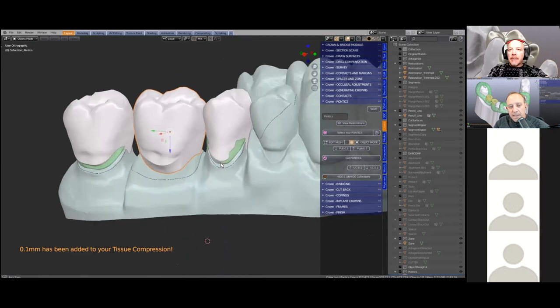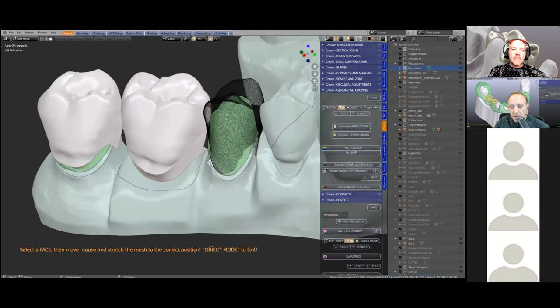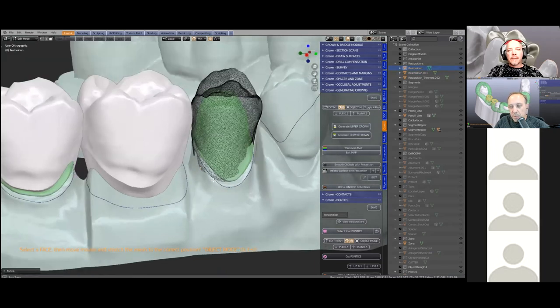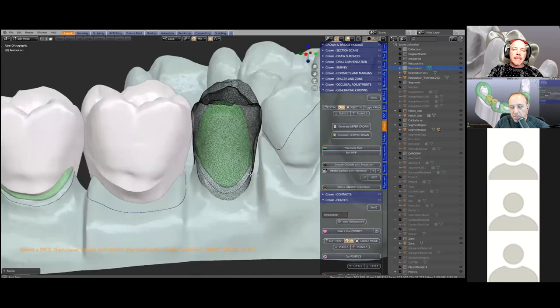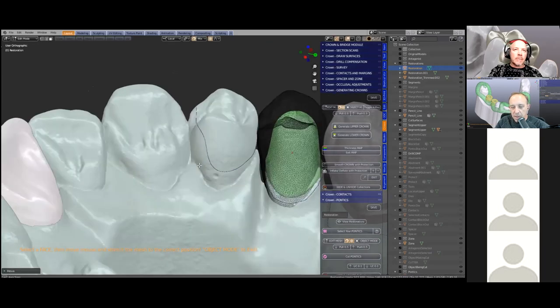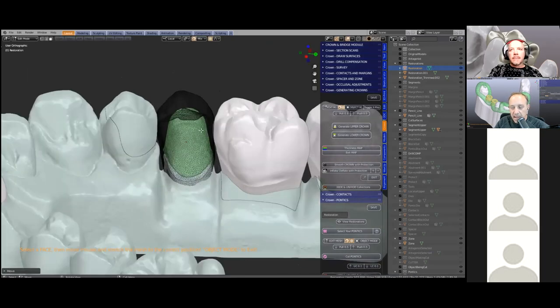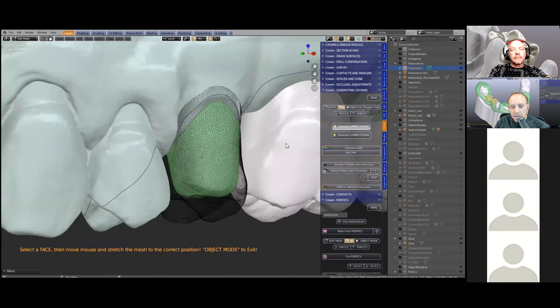The next part: Michael's going to the 'generating crowns' sub-menu — this is where the magic happens. First, you just pull the mesh of the tooth library tooth over the pencil line, trying to establish a good tooth emergence profile from the tooth prep line upwards. You're just bulking it out, pulling the mesh — it's very easy to do. You click into the mesh, use the G key, and because we have a proportional editing feature, it can pull it out proportionally.